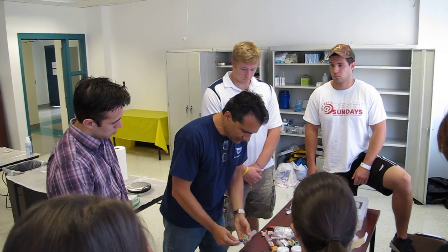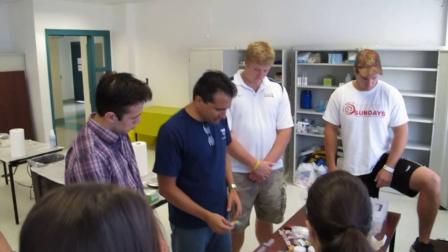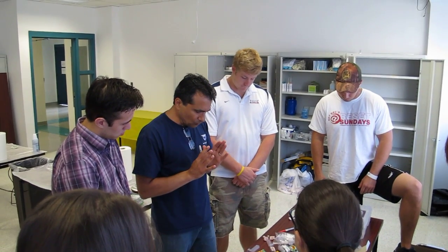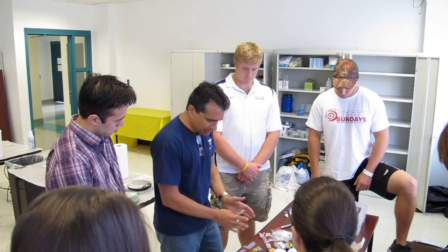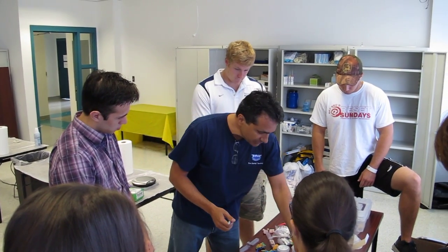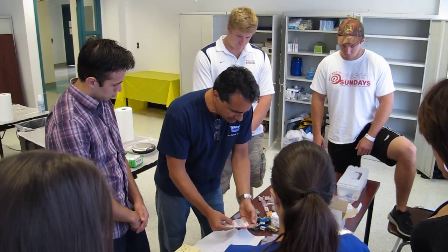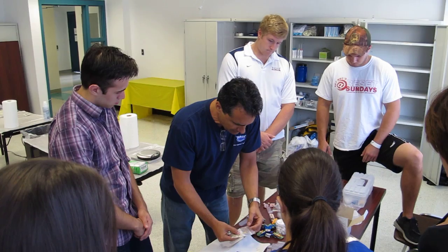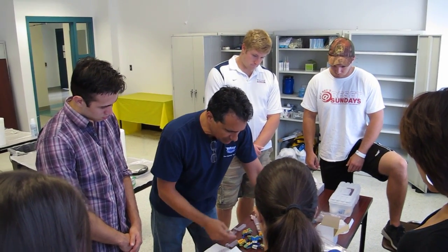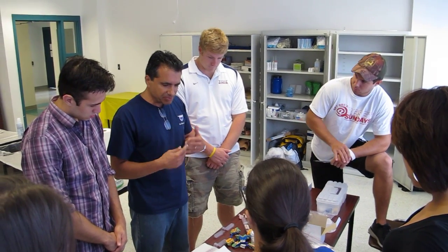You need room in between for your impression. The impression goes right in between the two halves, with enough room on the bottom and a lot of room on the top — you need material in between, and I'll explain why in a minute. The articulator is ready, but before lining it up with your impression, we need to address the movable parts. We've got to have pins that go in place, and the system comes with identical pins — we'll take three of those out.